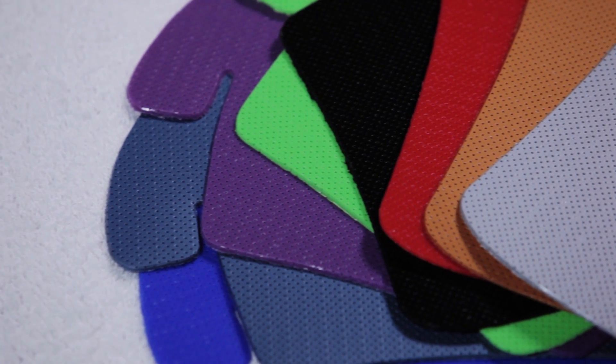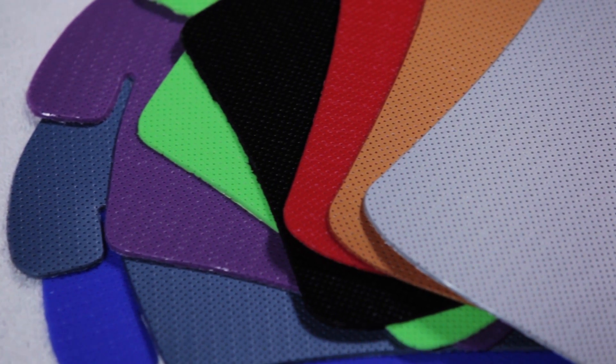Orfit Industries offers 8 bright and bold coloured thermoplastic materials called Orfit Colors NS. These are coated elastic products with perfect memory and stretch.